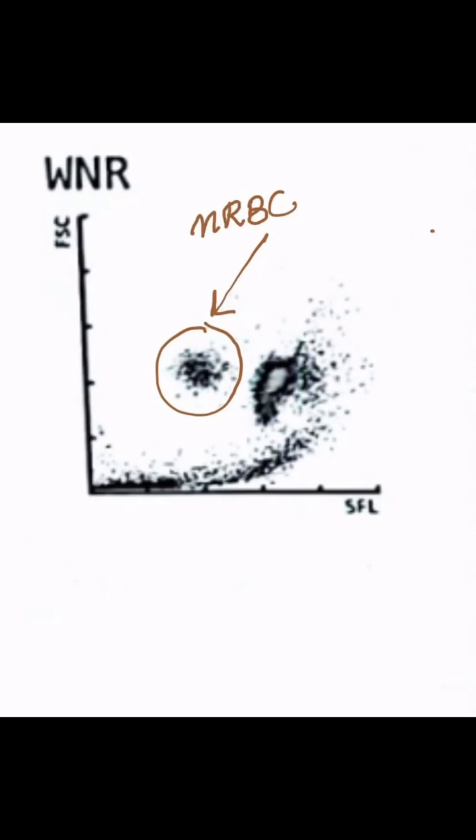Now look at this real case. In the WNR channel, with side fluorescence on the axis, you can see there is a separate cluster from the WBC cluster — that separate cluster is nucleated red blood cells. This patient was a case of hemolytic anemia, thalassemia major, and had lots of nucleated RBCs which were separately picked up by the WNR channel.